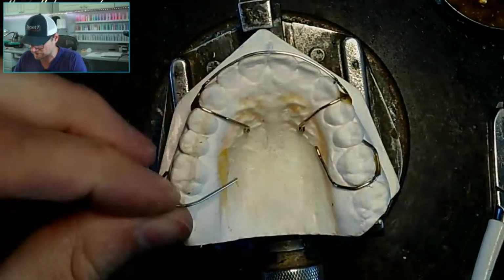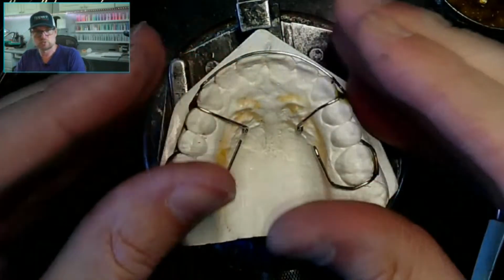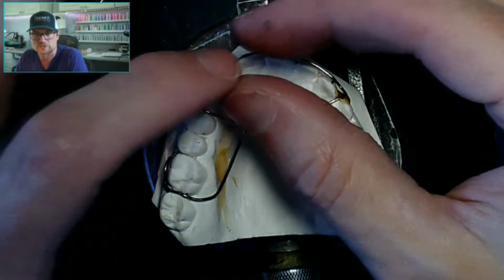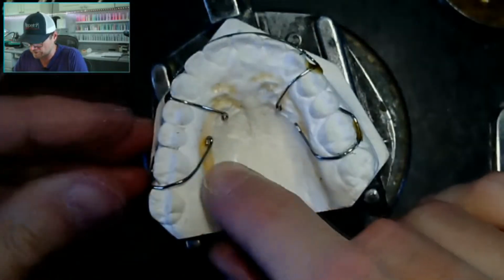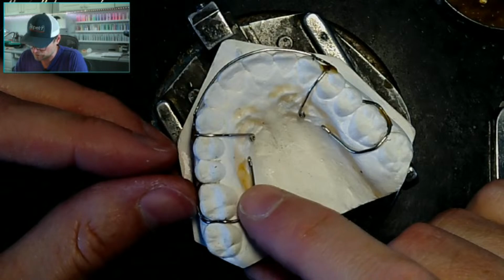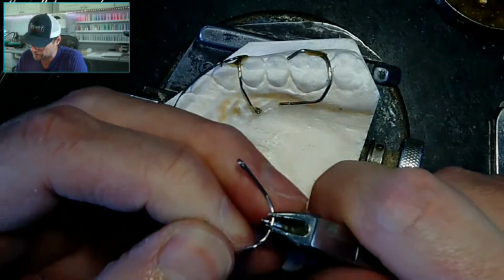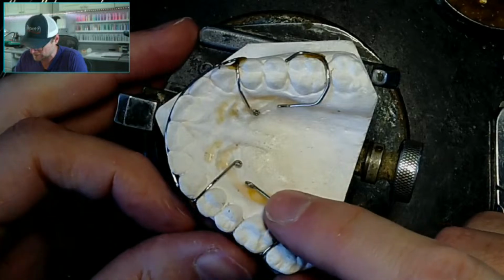I used to think the alginate was absorbing too much water and swelling, so you pour it up and the impression swelled closer together, so there's less to pour up. I haven't heard back from her. I wrote a whole big old email with different suggestions, like, hey, the impression may be breaking if you're bottoming out the teeth in the impression tray, and when you pull it out, the suction will break this side, and they'll go past each other. I've seen that happen before.